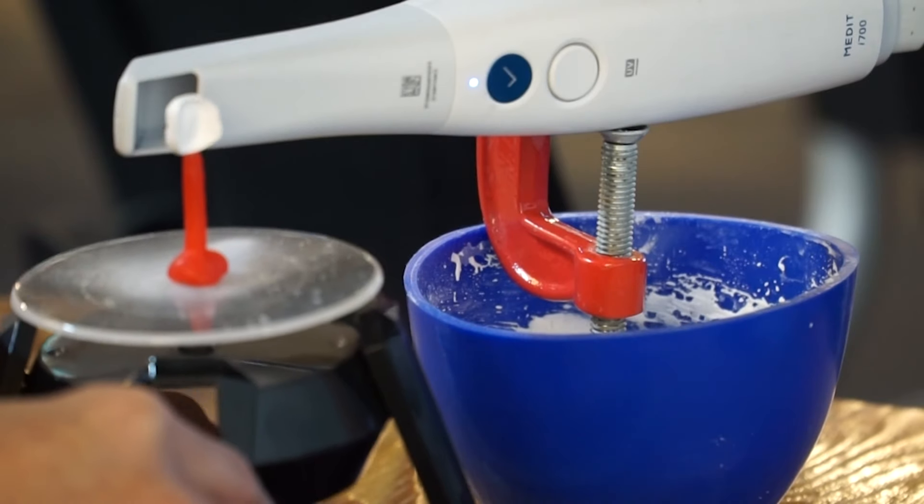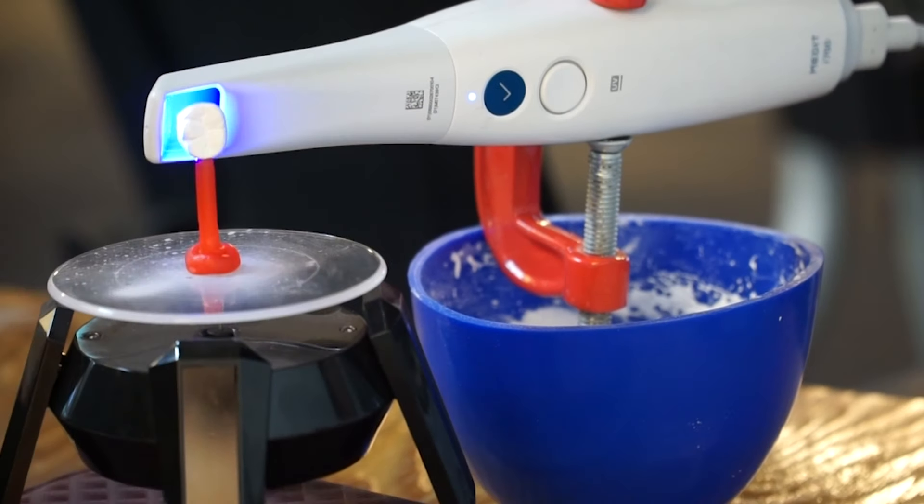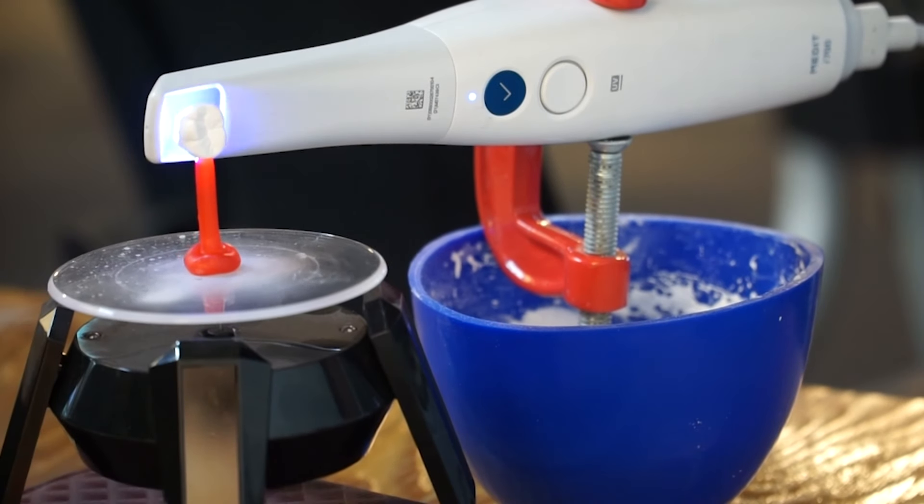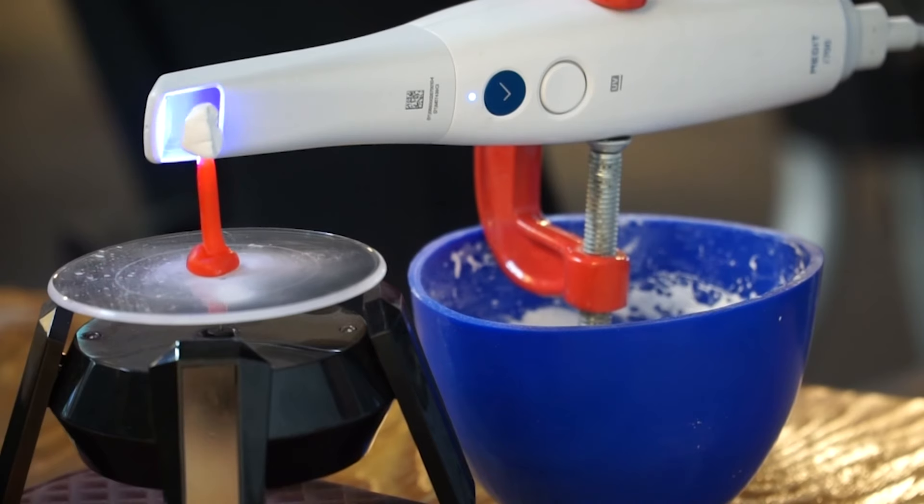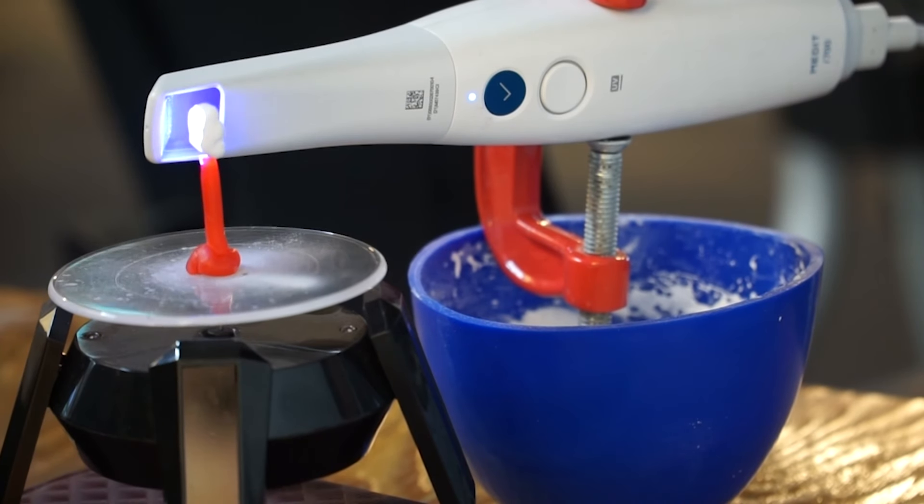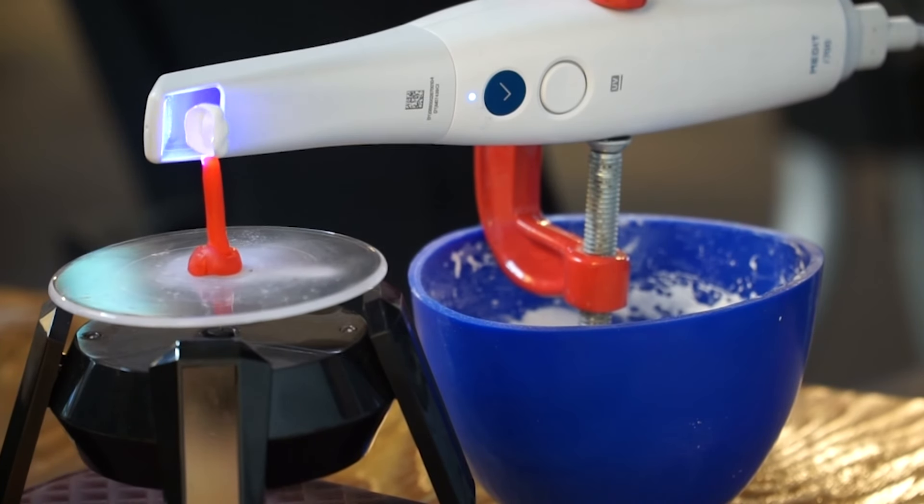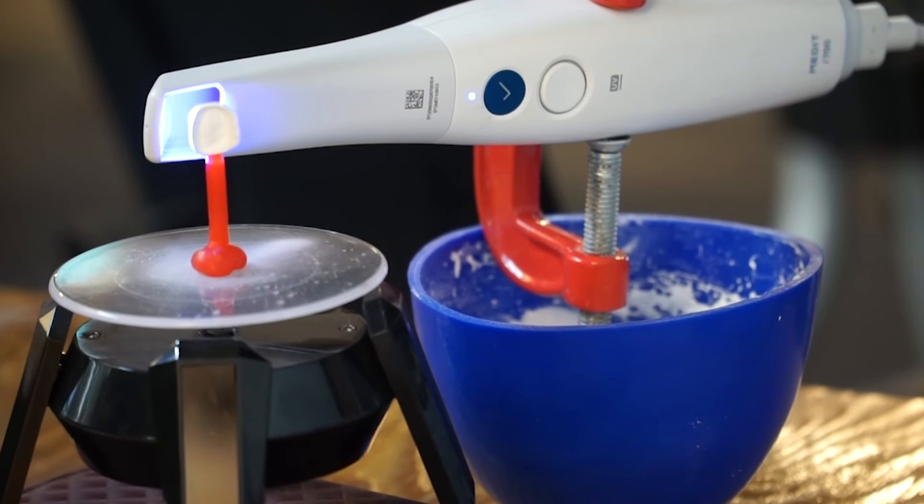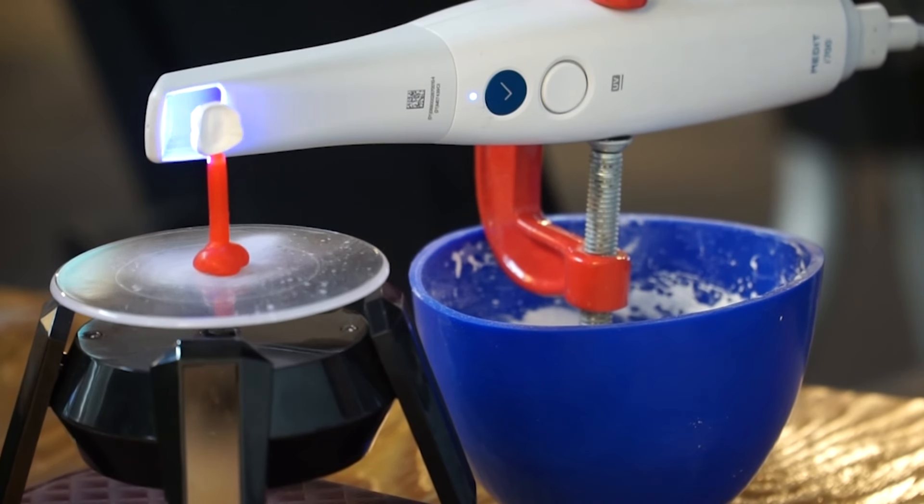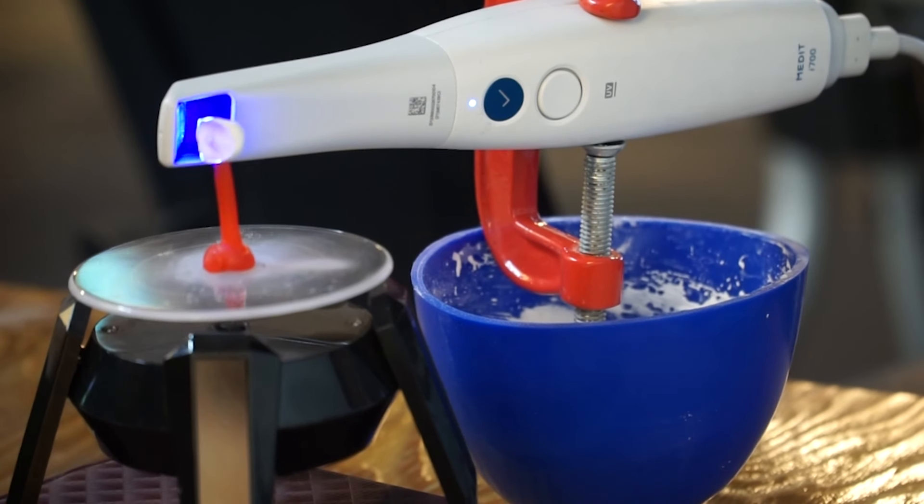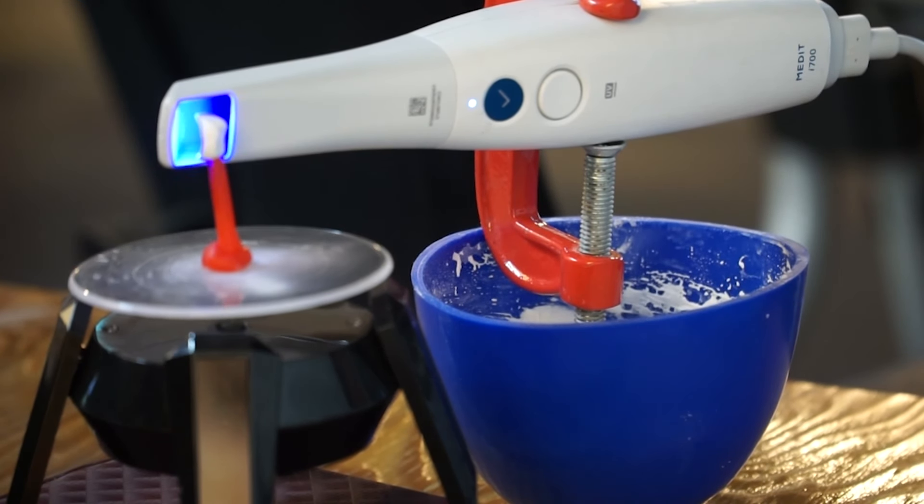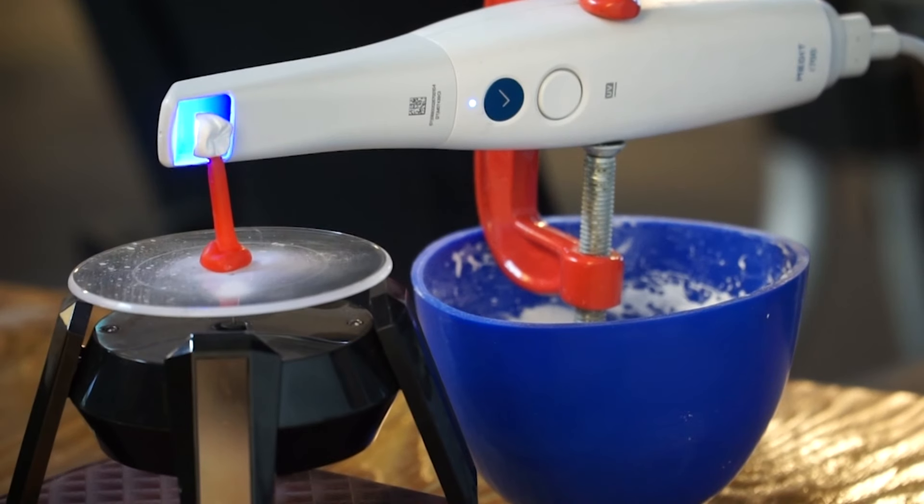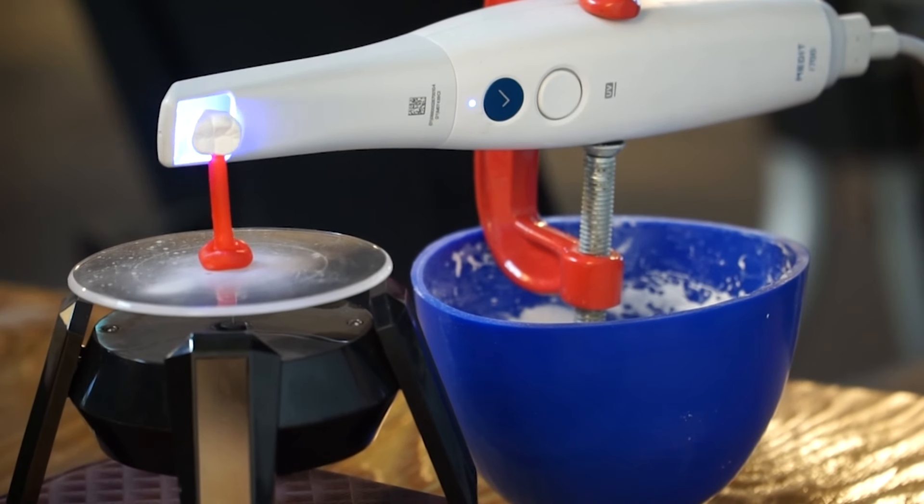To solve this problem, I tried many different things. Among them, the following method worked best. Place the crown on a turntable and clamp the intra-oral scanner to create an environment similar to a model scanner. Apply wax to the adjacent side of the crown and finish the scan by applying wax to the lingual or buccal side.